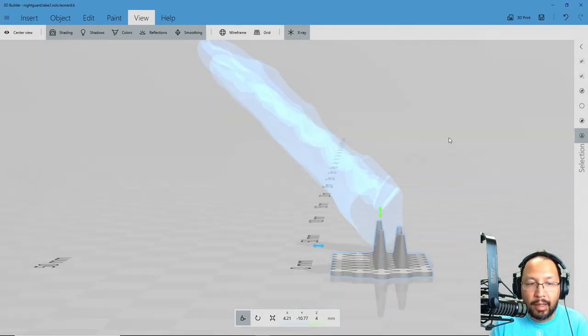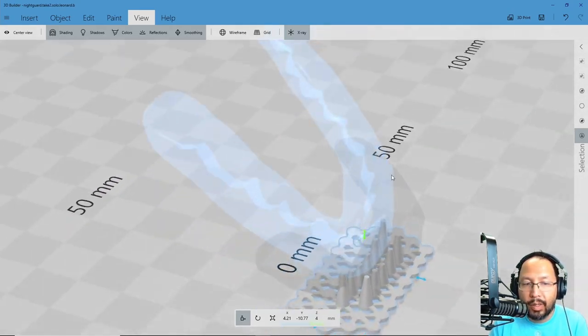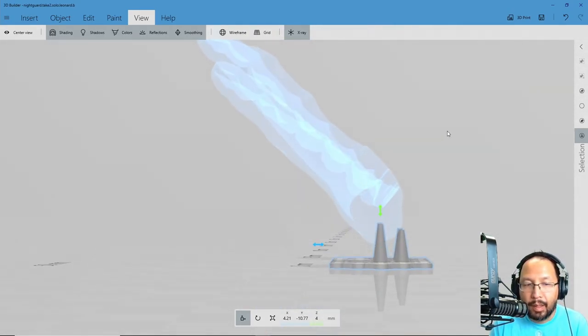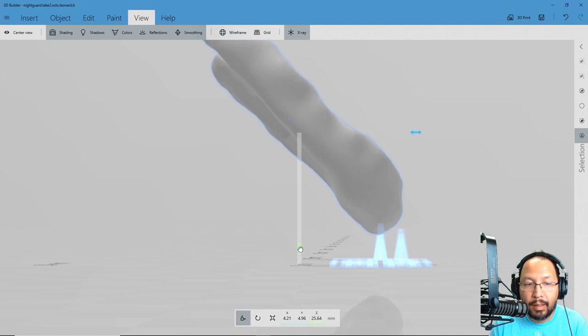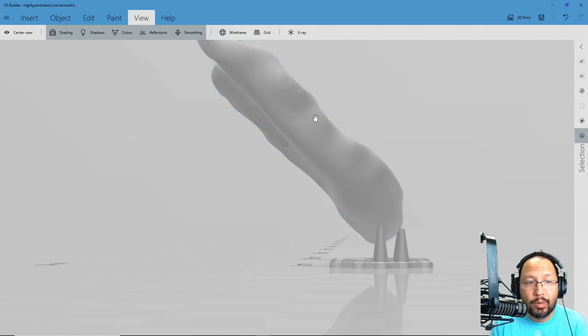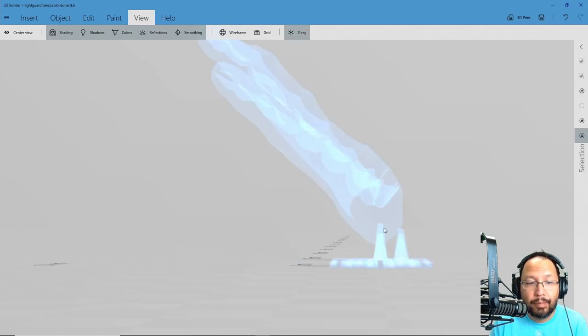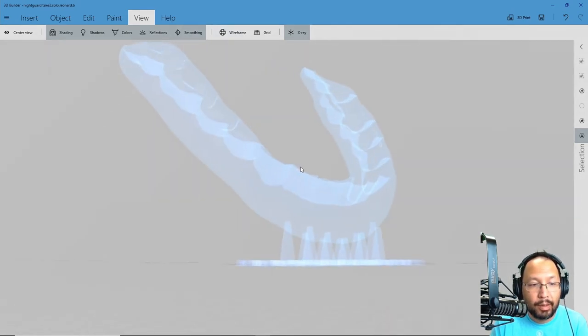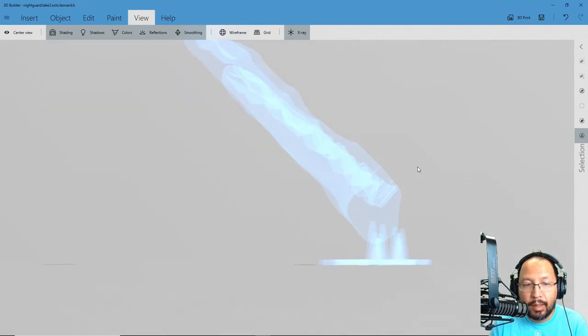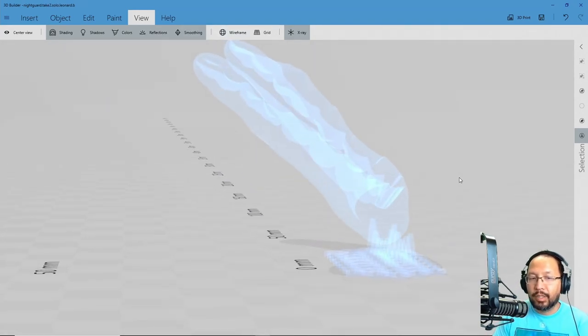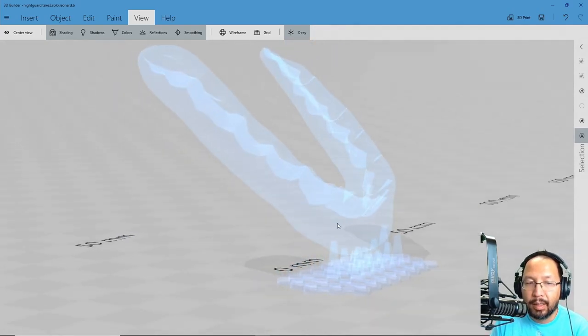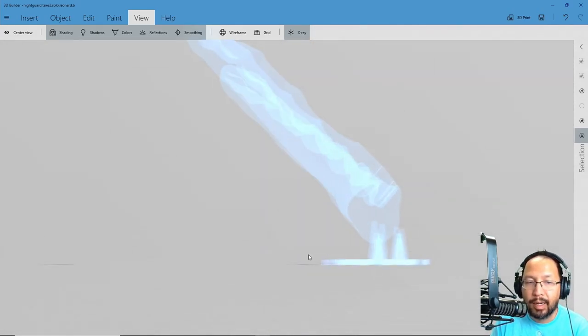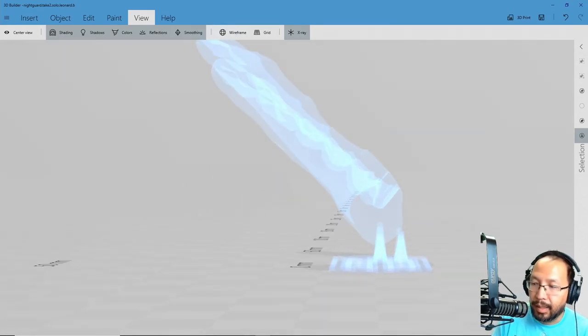If they are, that's going to be bad news because those spikes will then cause your night guard not to fit. And what you can do here is if you don't like what you see, you can go ahead and raise the night guard up and down to fit and double check with the x-ray view again. You can actually x-ray both of them and you can see there is no superimposition. This is going to be more true of my mandibular splints, which is how I prefer to do it. With upper splints, you're going to have to be more careful because the edge of the night guard will be closer to the intaglio. So be aware of that.